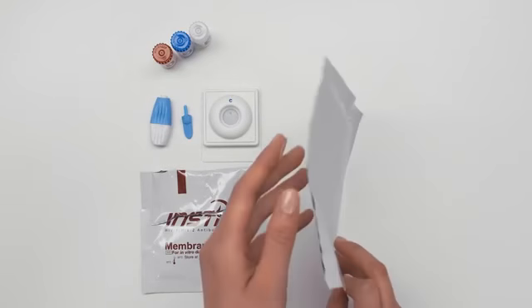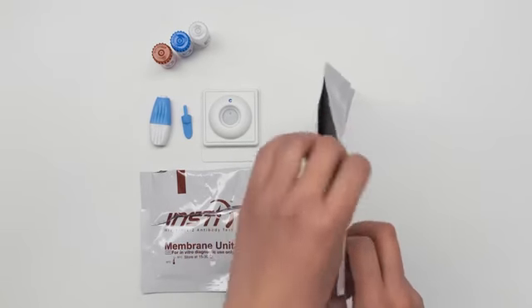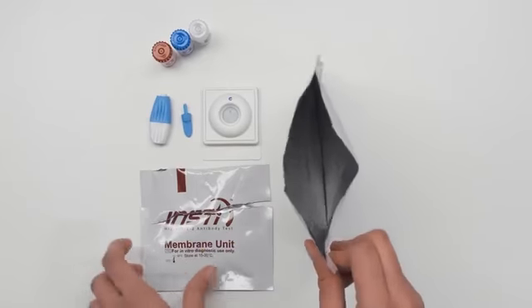Put all of the items back into the big pouch. Throw away the pouch into the waste bin. Take care.